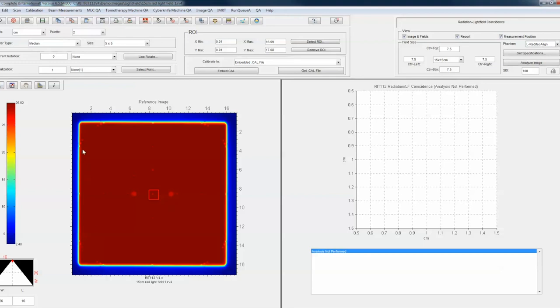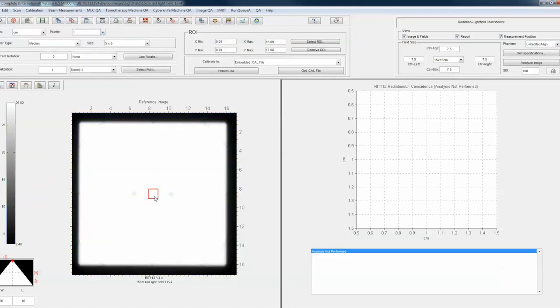This happens to be an iso-align — you can see there are some other BBs on here for other things, but we don't need those; all we need is this center. The first thing we're going to do is take this region of interest. If I go to palette one, I have a gray image, and I can move this red box around and place that center object — whether it's a pinprick or a BB — inside this region of interest. This is going to be the isocenter, the center of the light field and the radiation field.